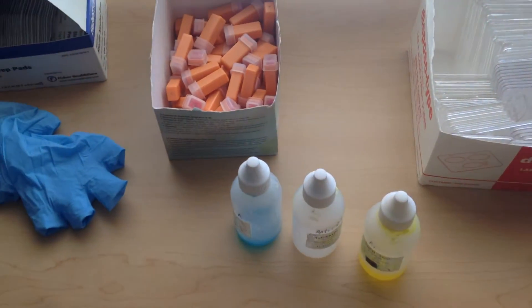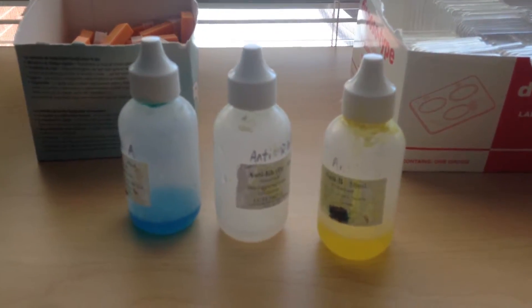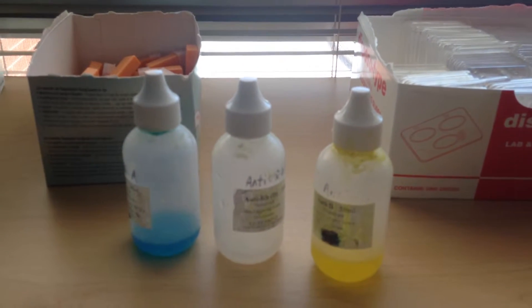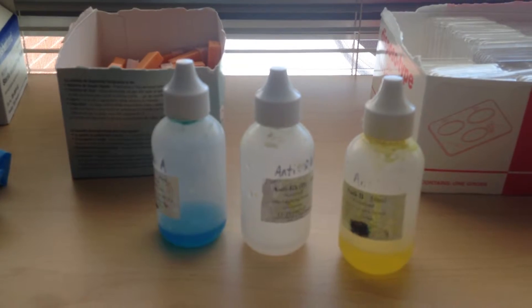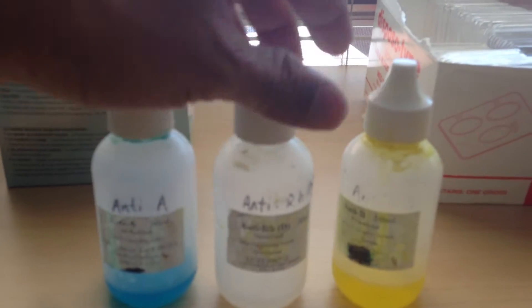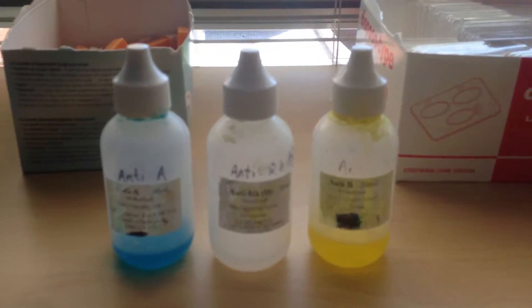So those are the safety gear items you need to have available. Now I'll show you the tools you need to do the blood typing. In these three containers you have the serum anti-A, anti-B, and anti-D or anti-RH. Those three types of serum you will need.